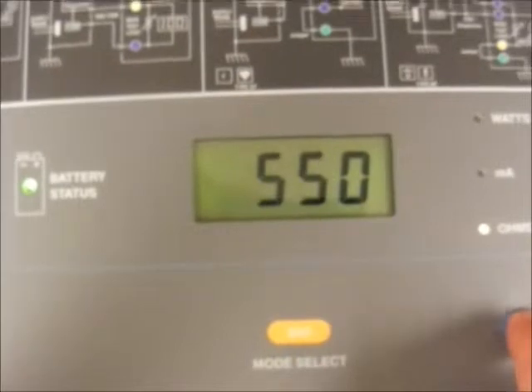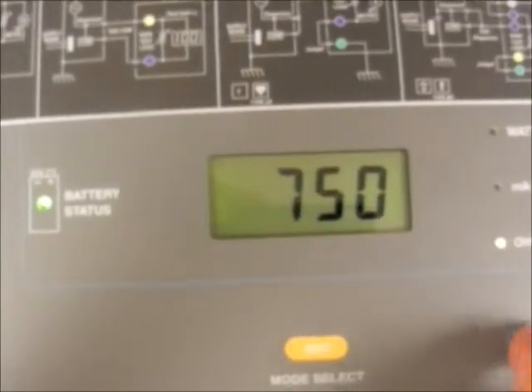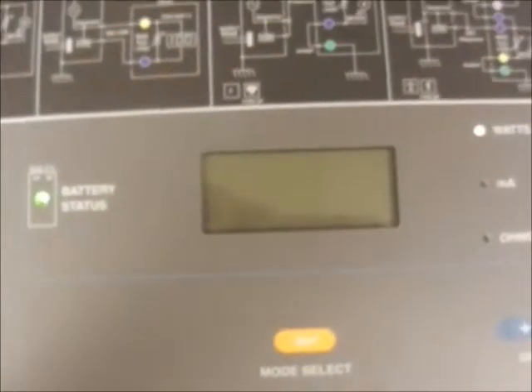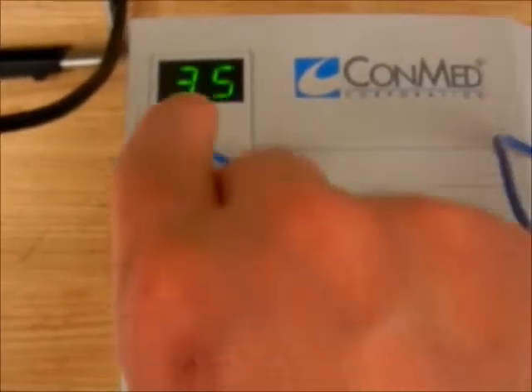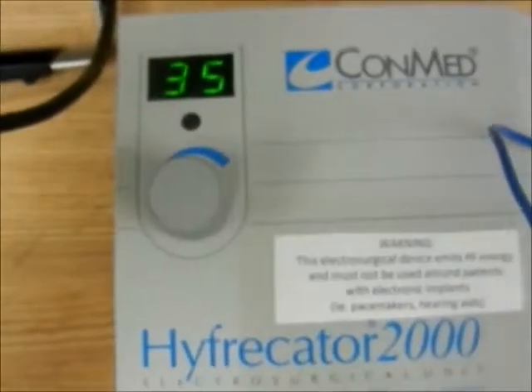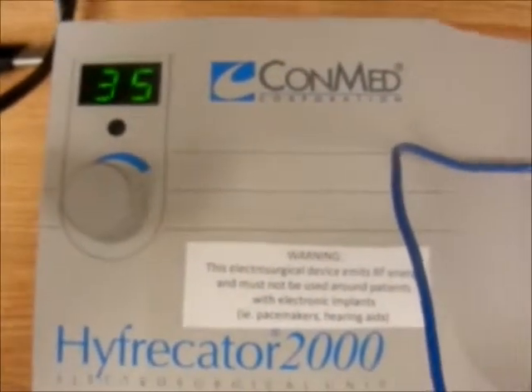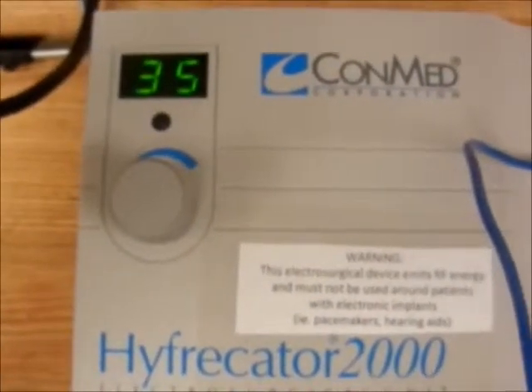Since our setting is on high, we will select 750 ohms, which is our max. Press enter. Notice how it defaults to watts automatically, and we will activate the pin.